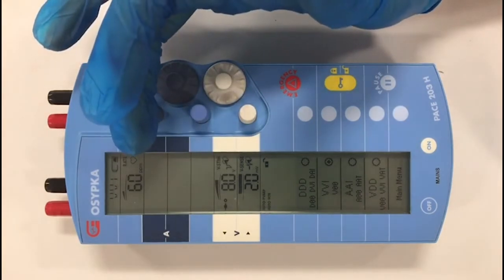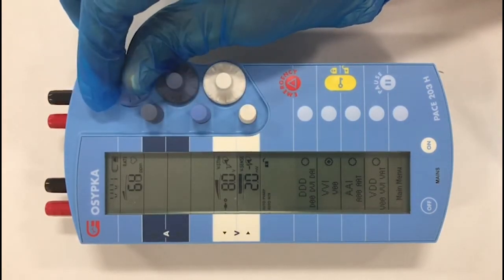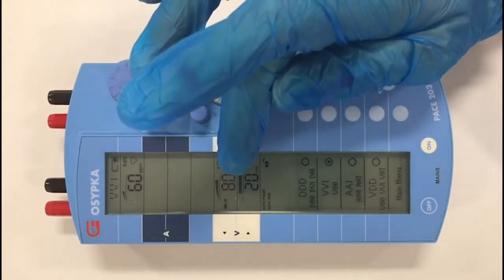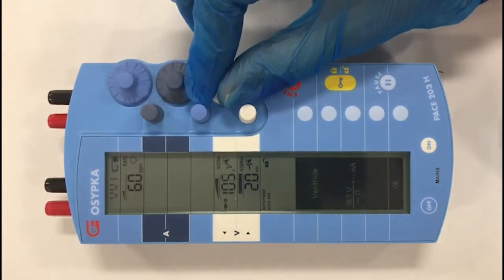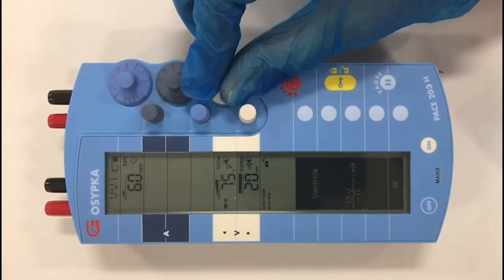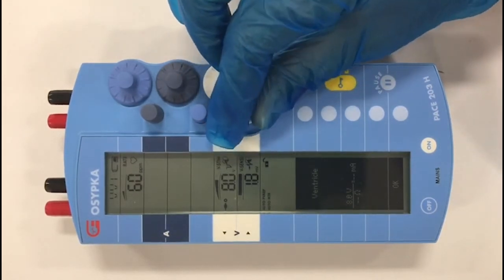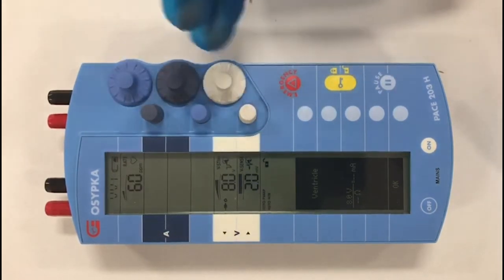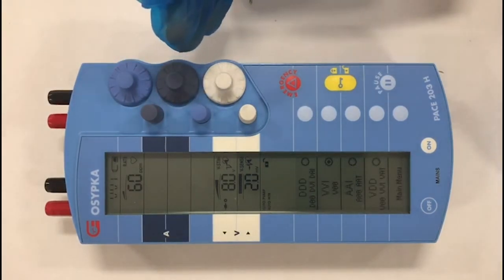The rate, which is always at the top, I can change by rotating this control here. The output, which is this parameter and this control — by rotating the control I can change the output. And the final one is the sensitivity. So those three parameters are the only parameters required to use this device in VVI mode pacing.